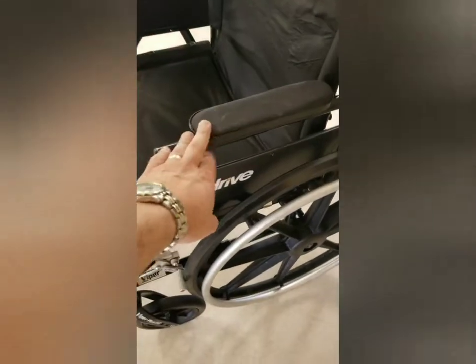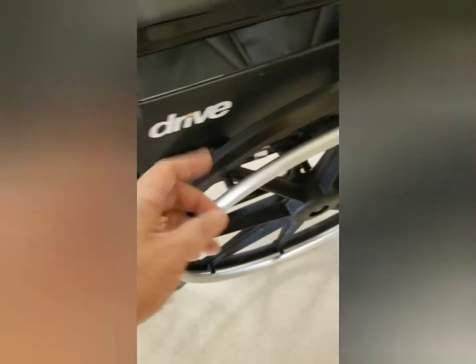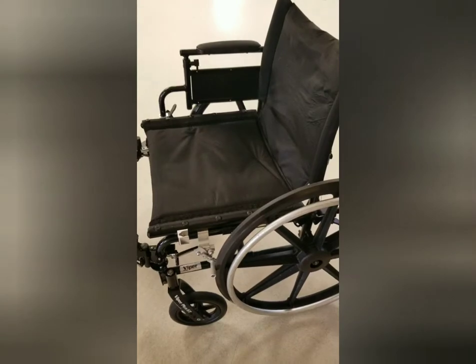This part here is the armrest. Armrests can go up and down — there are levers that allow it to elevate or lower based on the patient's needs. Some armrests completely come off; this is a flip-away armrest, which means it tilts away. Just press in and move it back. That allows the person to get in and out, usually with a sliding board, or if they're not able to come fully upright it clears the path to make transfers easier.